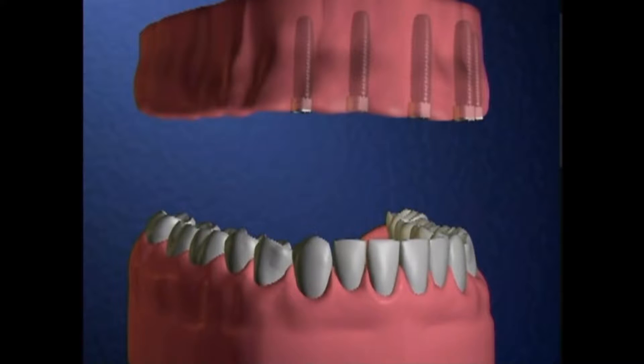Restoring your upper jaw with dental implants is accomplished in two phases. The first phase of the procedure is the surgical placement of the implants. They're under the gums for several months while the bone attaches to them.